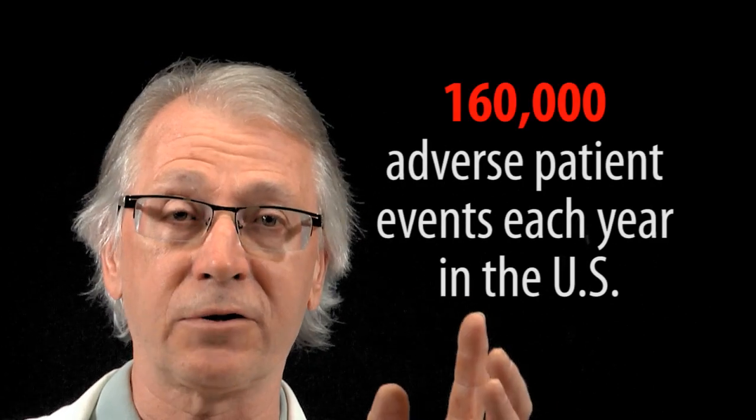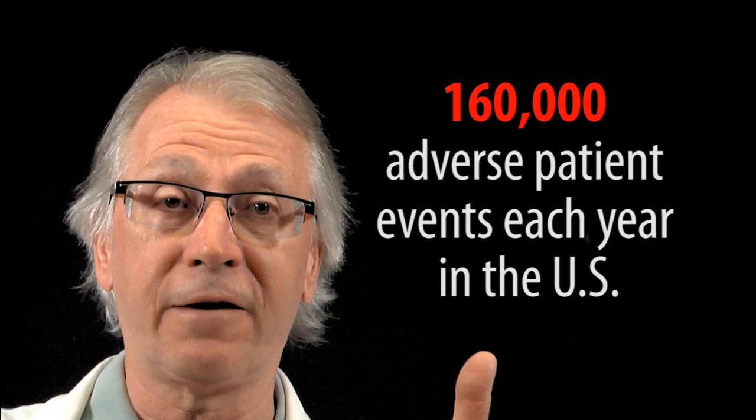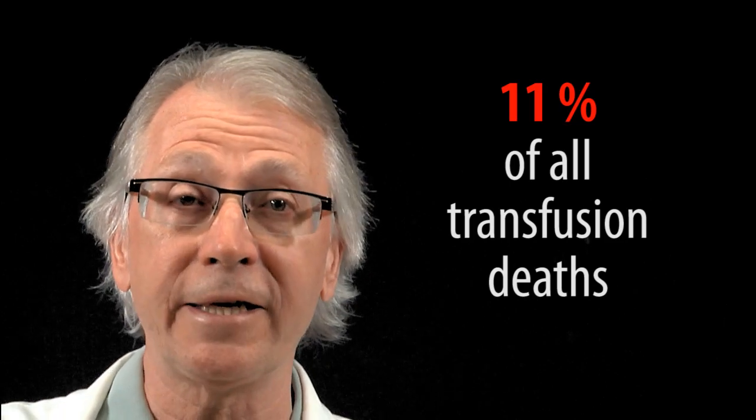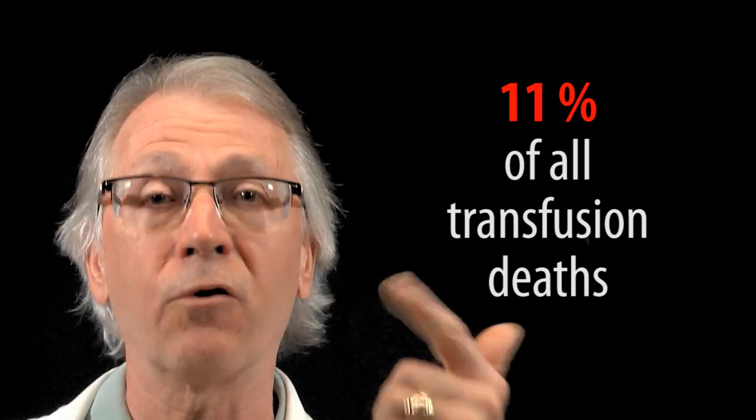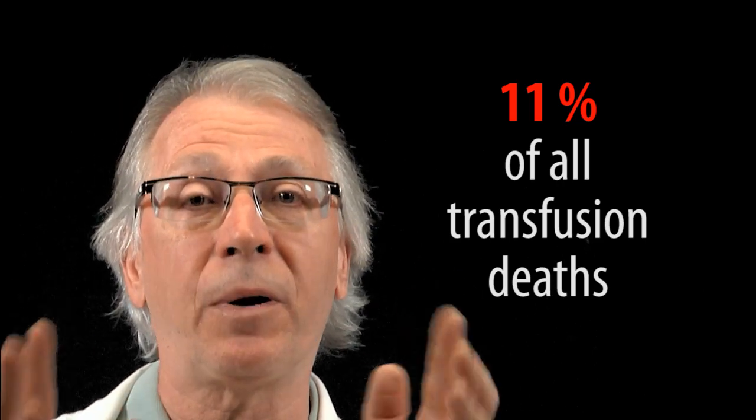First, some perspective. Did you know that every year in the US, 160,000 adverse patient events occur because the patient was either not identified properly or the sample was improperly labeled? And that 11% of all transfusion-related deaths are because the phlebotomist didn't either identify the patient or label the sample correctly? That's why we've got to get this part right.